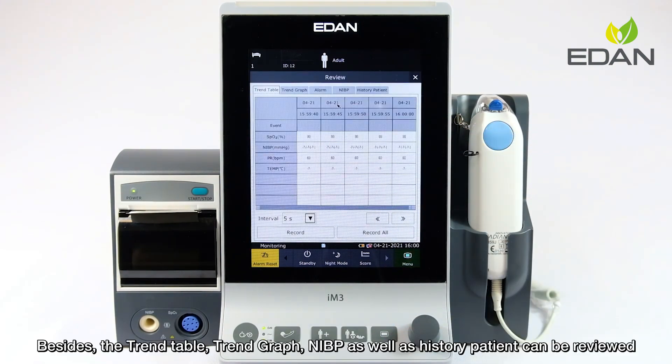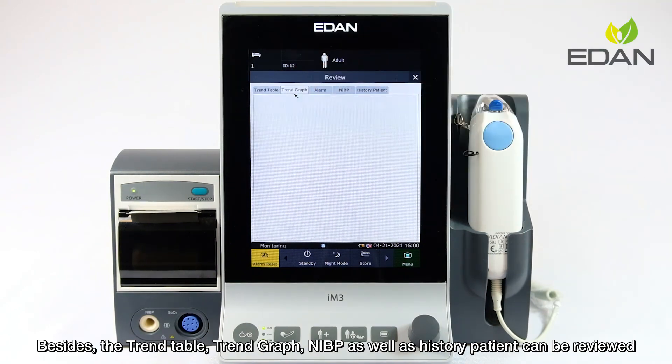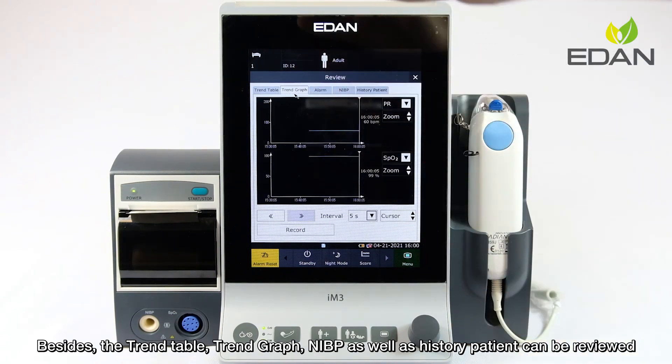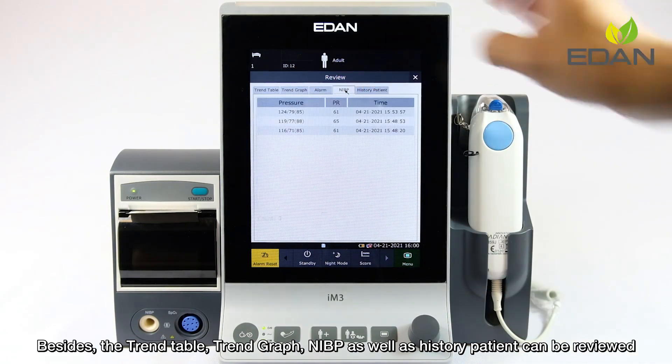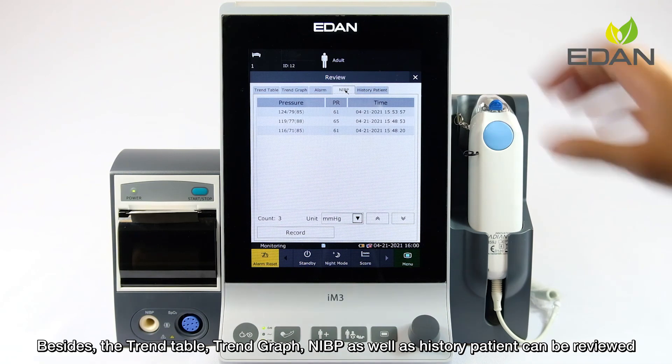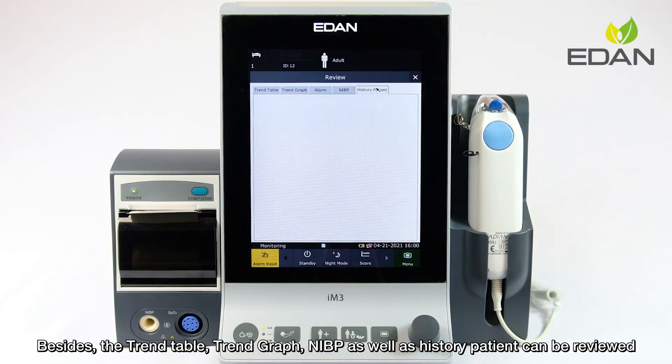In addition, the trending table, trending graph, NIBP, as well as history patient data can also be reviewed.